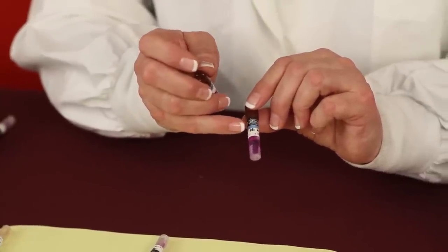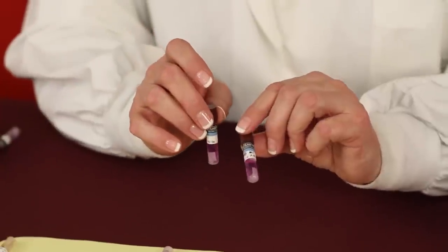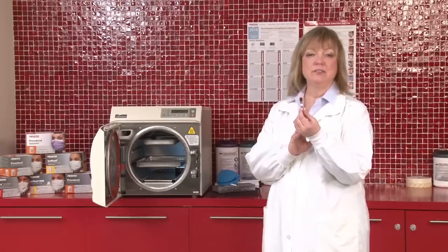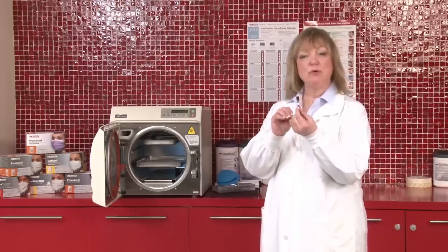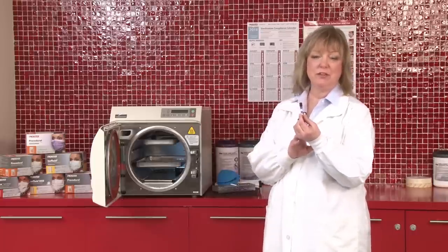It's important that you write certain information so that you can identify the brand of the sterilizer, the run of the day, the date, and the operator's initials. When writing on the vial, it's recommended that you use an approved marker that can be processed within a steam sterilizer.